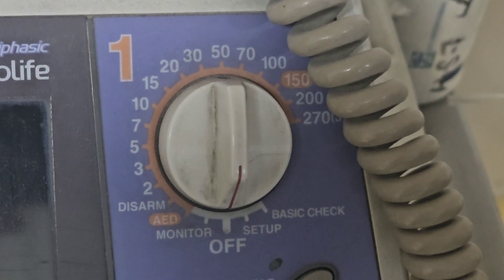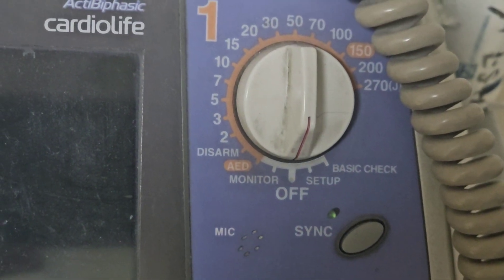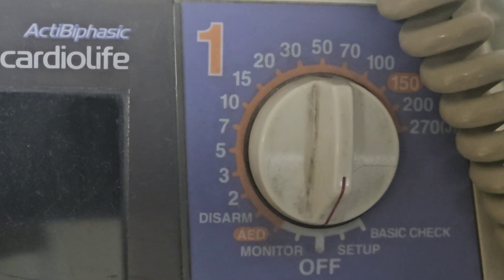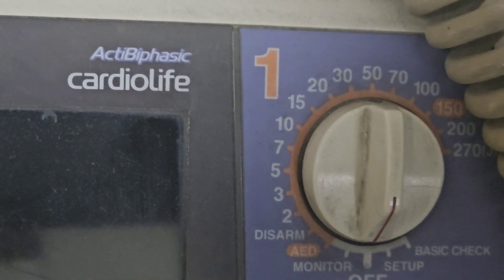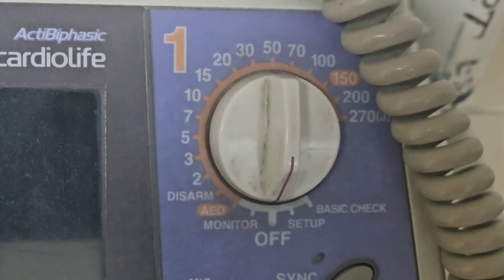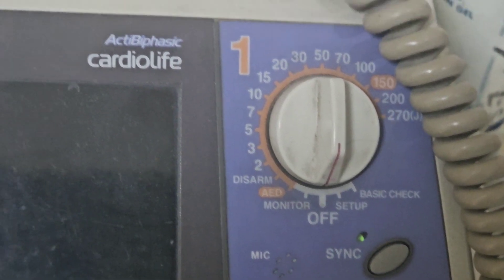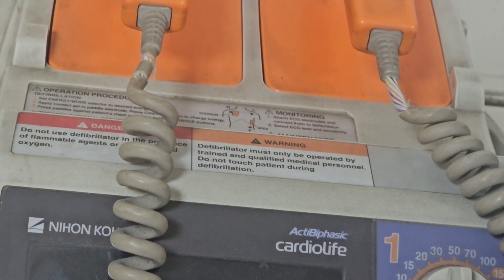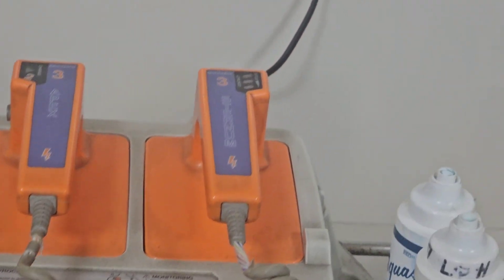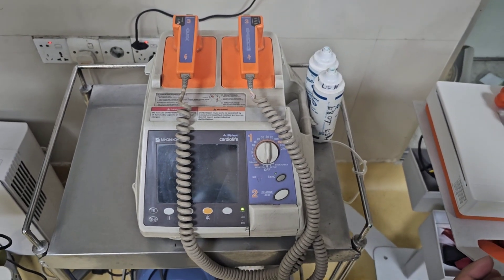In a pediatric patient, how much energy do we require? We require just 2 joules per kg body weight. For a 10 kg patient we use 20 joules; for a 15 kg patient we use 30 joules. This is how we use it in pediatric patients, but it requires a change of paddle to the smaller pediatric paddle, as there is a reduced surface area on the anterior chest of a pediatric patient.